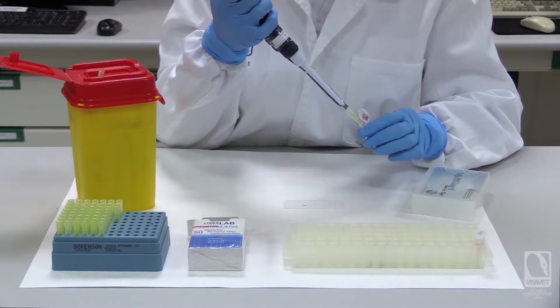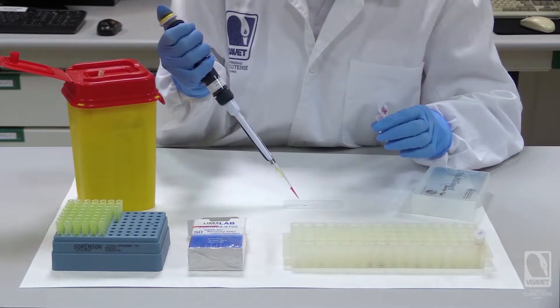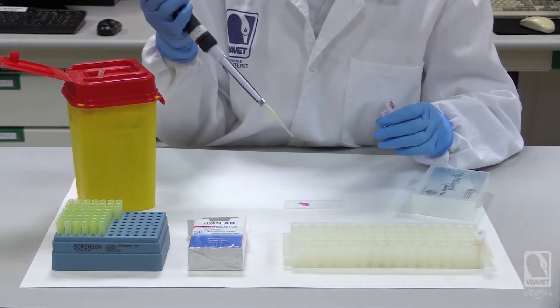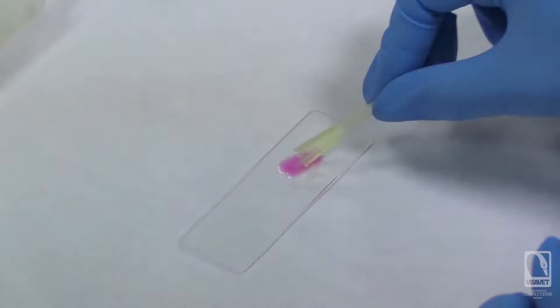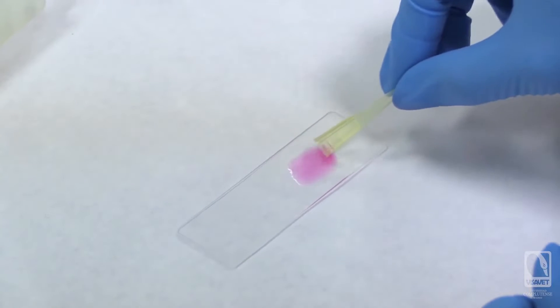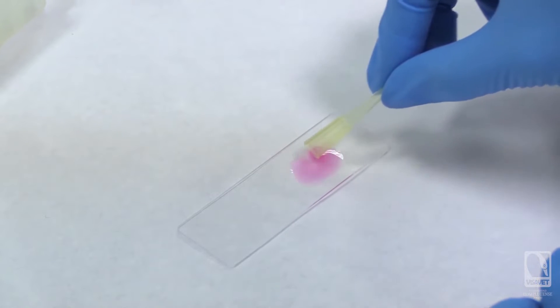We place the drop next to the drop of serum. To begin, we will mix the provided solution with a micropipette tip using circular motions. Our goal is to ensure that the solution remains contained within the slide, as demonstrated in the accompanying diagram.